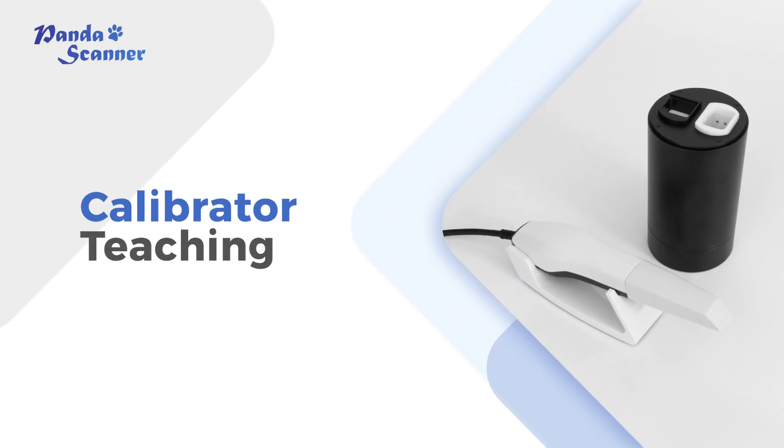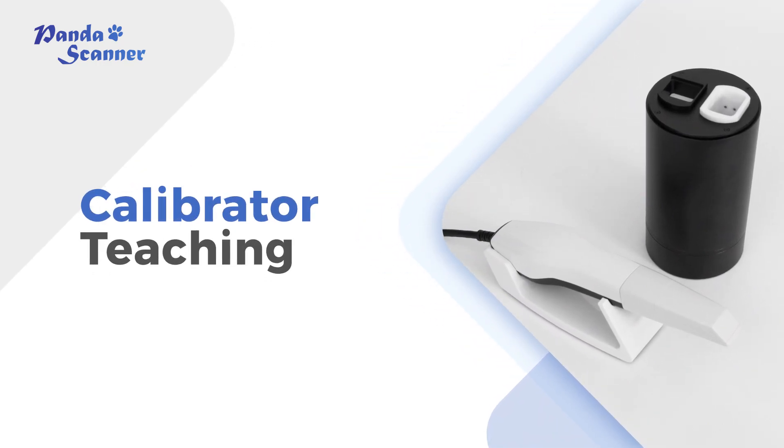Hello everyone, today I'm going to show you how to use our Calibrator.